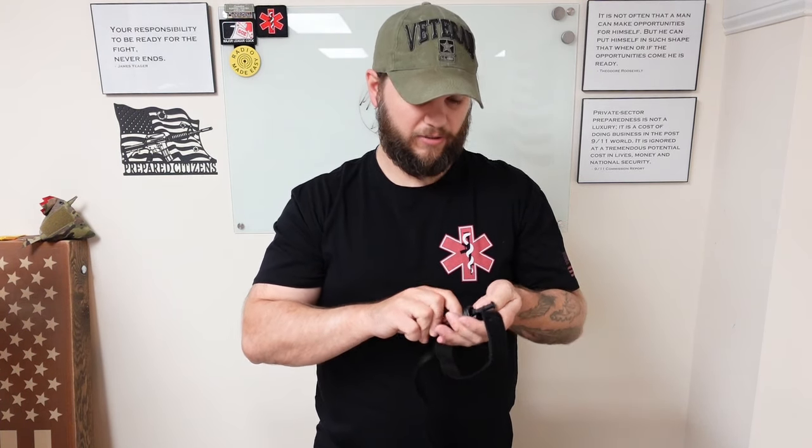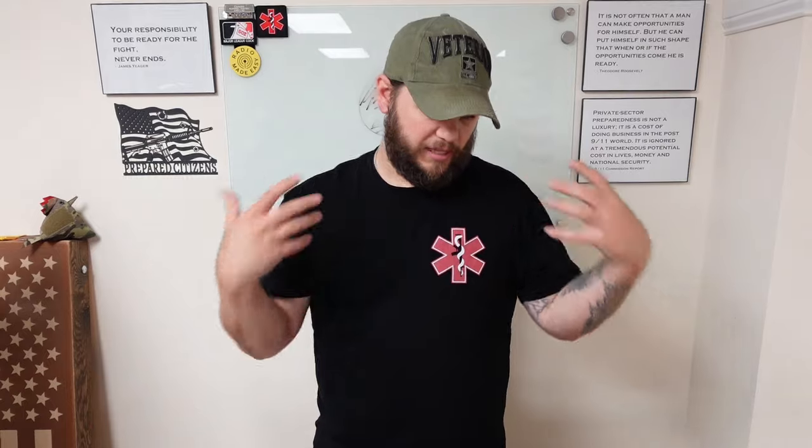Obviously we're going to do a lot more testing than that, but just as an initial test to show you guys. I'm going to try a couple different ways to prep it later. That thing is pretty slick. It's extremely lightweight. That's probably going to be the new go-to for us, as long as it continues to pass all the tests we're going to put it through — water test, stress test. We're going to try it on all extremities: legs, arms, with and without gear. Guys, pick one up. I highly suggest grabbing one of these for your EDC or to carry on you every day.